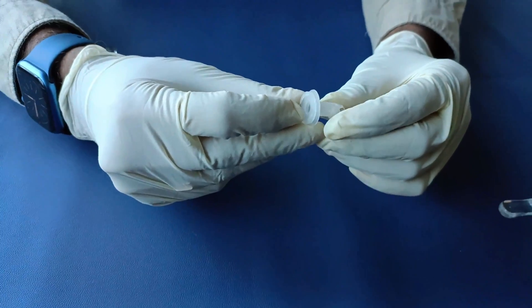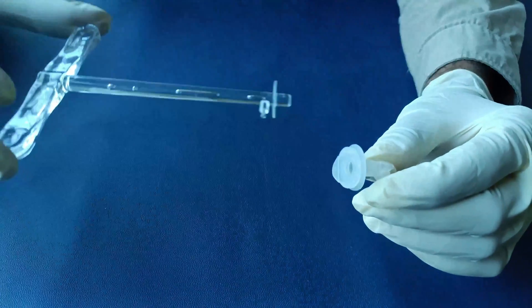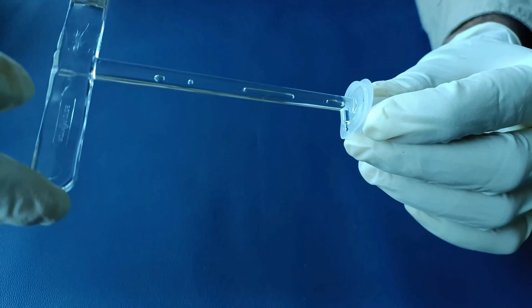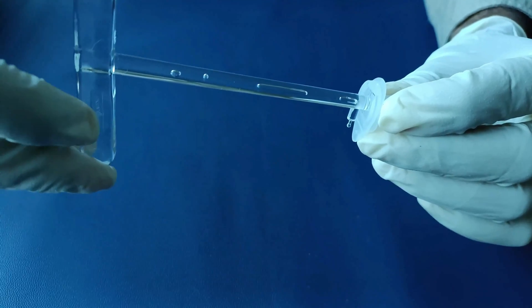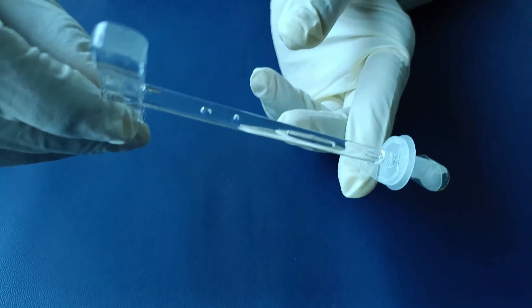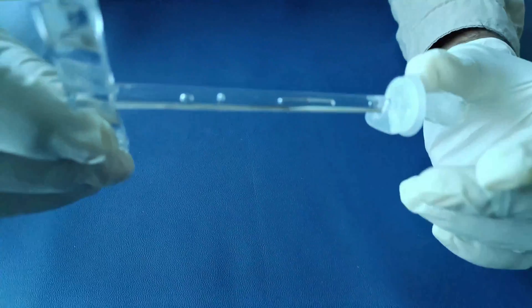After identifying the correct size of voice prosthesis, insert the outer cannula inserter in the upper flange of the outer cannula after synchronizing the structural alignment of the inward flips on the outer cannula with the outer flips of the inserter and then rotate it 90 degrees clockwise to slide in the flips. Hold and fix the flap of the outer cannula flange on the tip of the outer cannula inserter creating a locking mechanism.